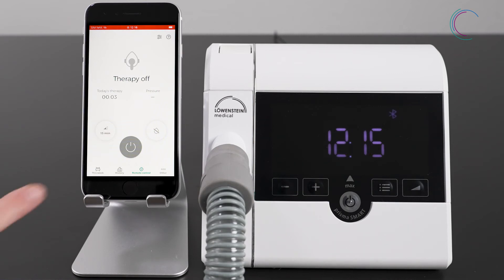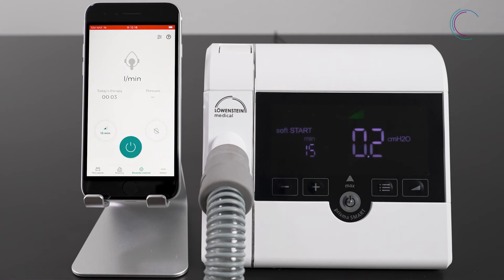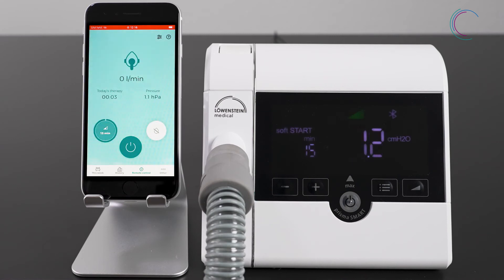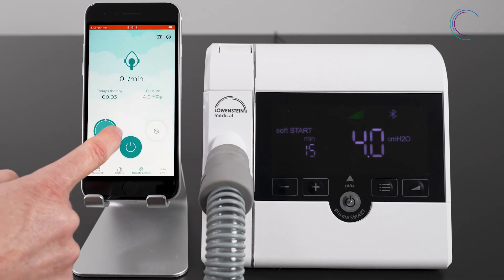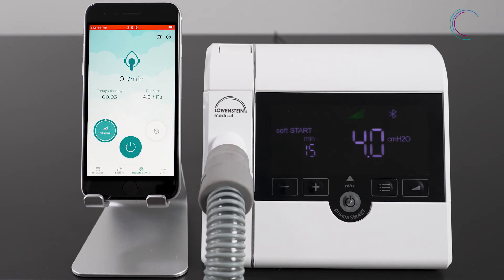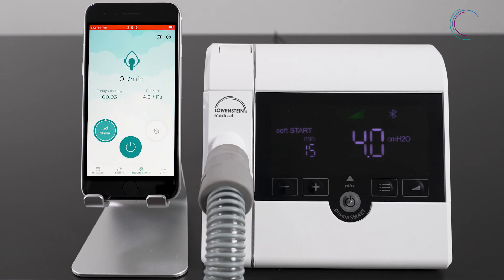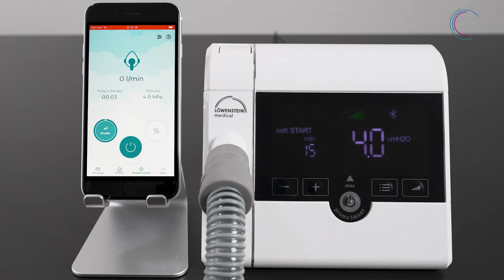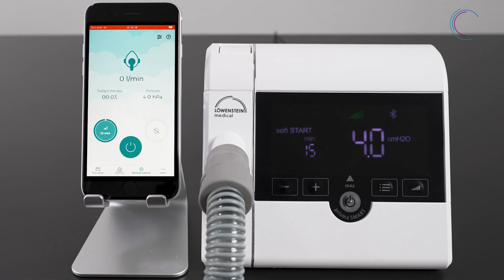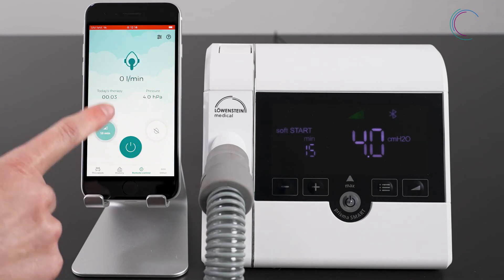When starting the therapy, soft start is automatically started as well. Look at the timeline and you know how long soft start is still activated. To stop soft start, press the soft start button.